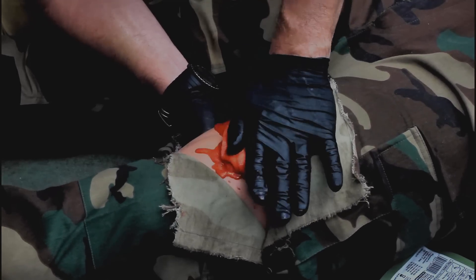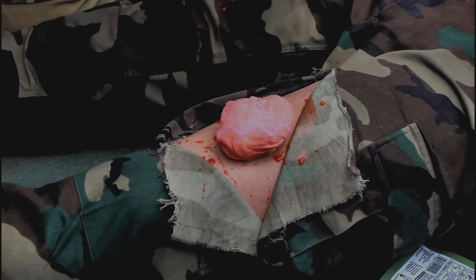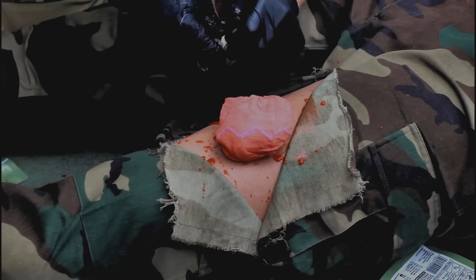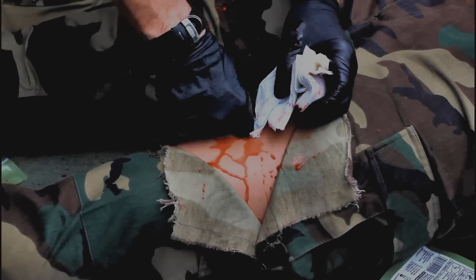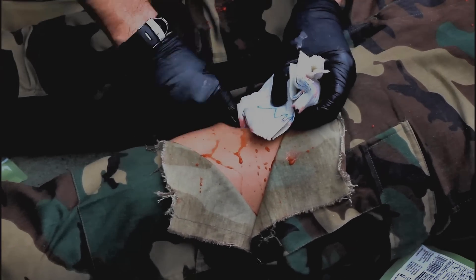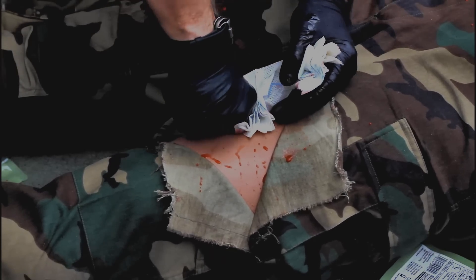In rare instances, active bleeding may continue even after your initial application of combat gauze. The probable cause of this is failure to place the hemostatic agent into contact with the source of bleeding. In the event that prior attempts at stopping bleeding were ineffective due to improper product placement or other factors beyond the caregiver's control, any combat gauze or standard gauze in the wound should be removed.